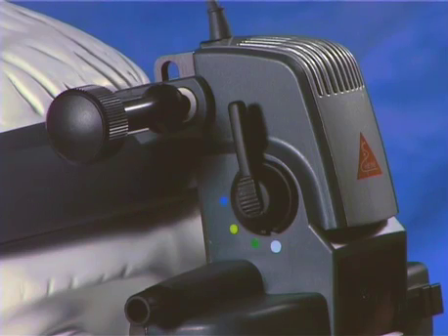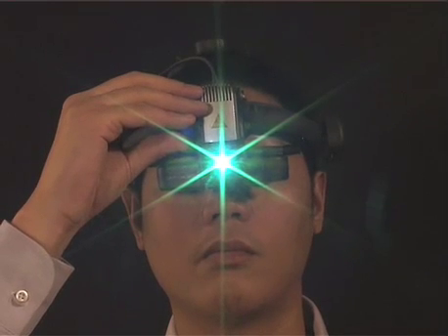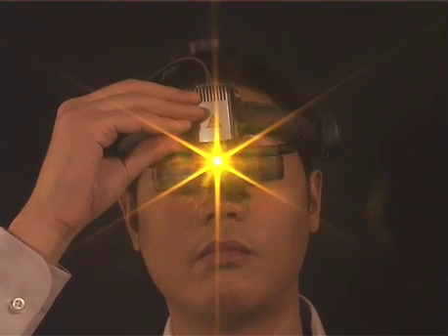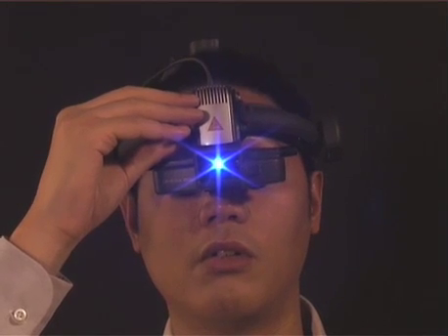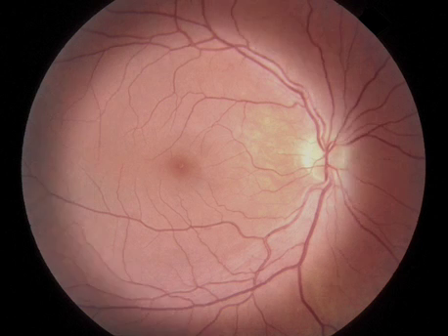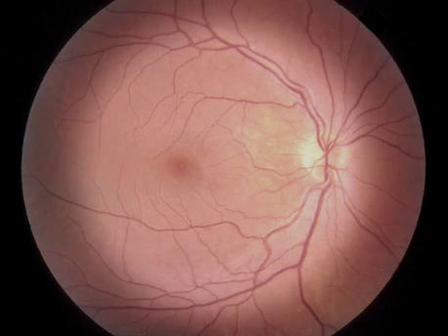Fourthly, there are several useful filters. The red-free filter increases contrast when viewing retinal vessels and also highlights retinal hemorrhages. The yellow filter reduces photophobia in light-sensitive patients. The cobalt blue filter is useful in exceptional cases, such as fluorescein angiography in a child under general anesthesia. Finally, the diffuser aperture. This is helpful when you're first learning to use the indirect. It provides a broader illumination beam and allows for more movement of the patient or the condensing lens in the viewing axis without losing the fundal view.